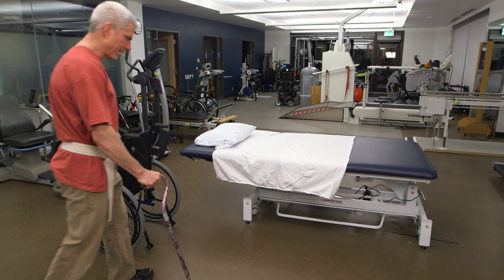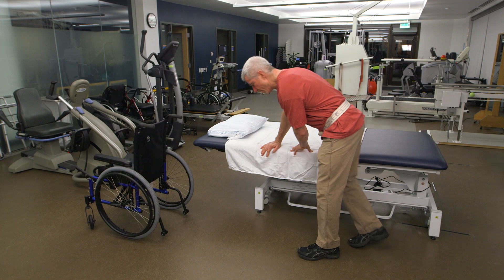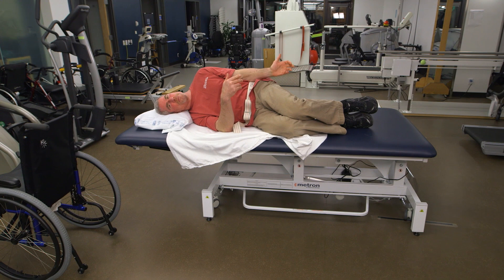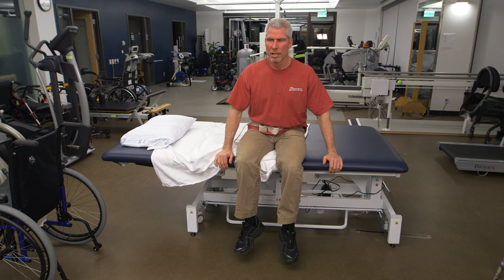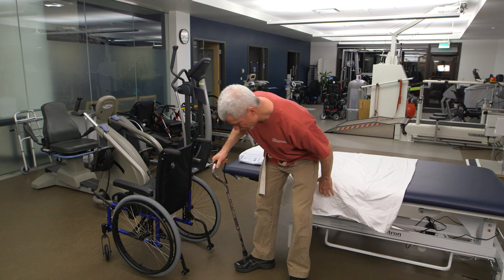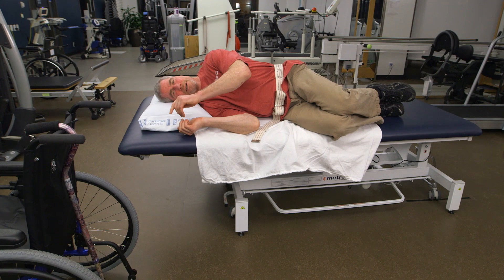After shooting all those videos, I sure am tired. Maybe I'll just take a rest. Now, what I'd like to talk about is what happens when I have to get up in the middle of the night. I get myself up and go — what happened to my cane? Maybe I should have, when I came in, had a place to put it that was within reach of the bed. That way, when I went to bed, it'd be there for me when I'm ready to get up.